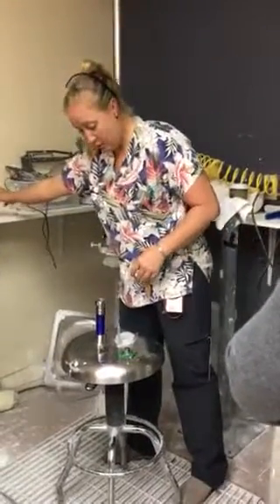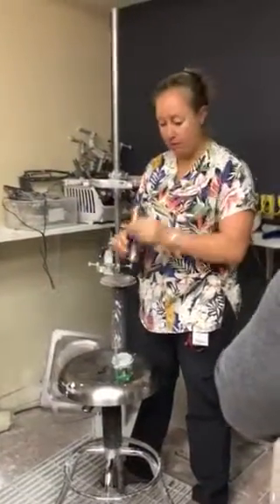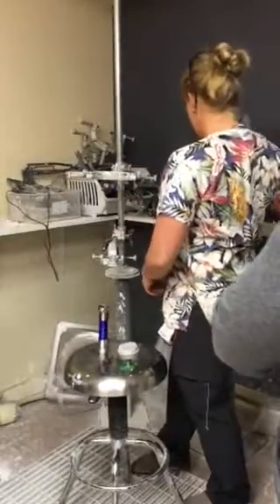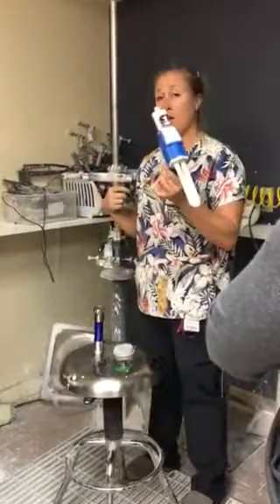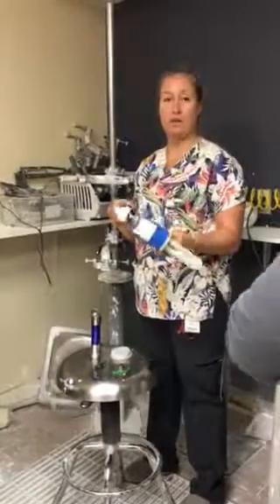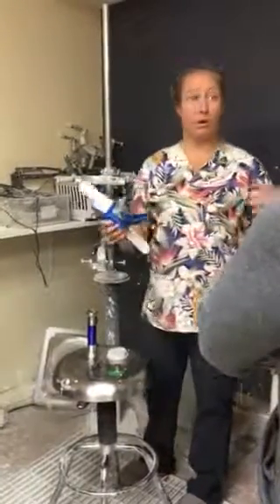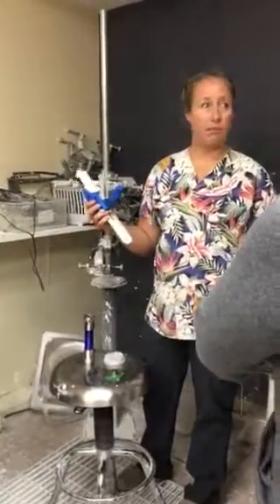Next, you have a pylon with a tube clamp on either end, or some version of this. You have your four-hole connector, pyramids, and some screws. Instead of mixing resin in a cup like last time, you're going to use Fabtech, which is just an adhesive. It sets off really quick and it's not smelly, so it's much more convenient, especially when you're all going to be in here throughout a short timeframe trying to bench align.